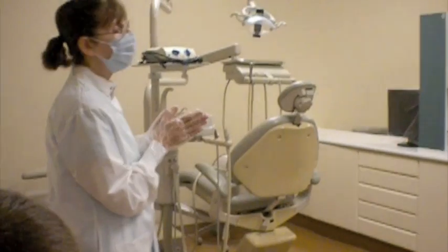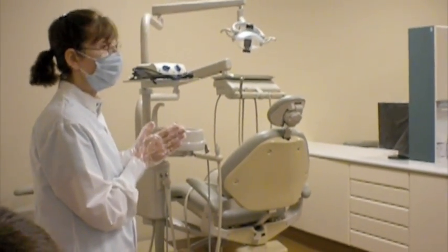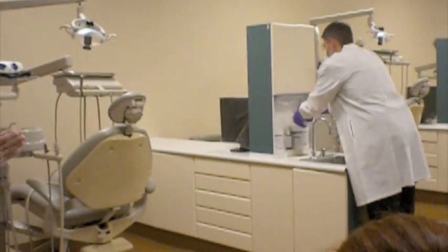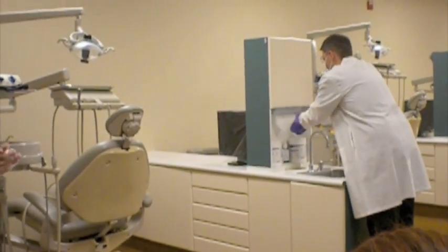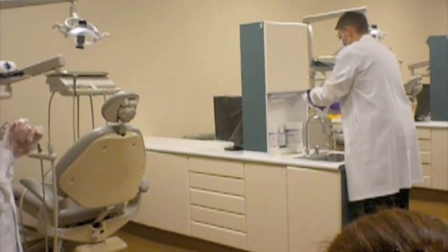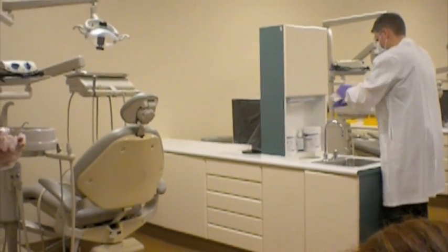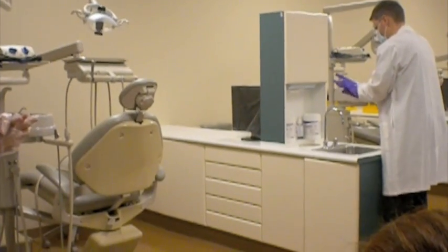How is he going to disinfect the unit? What supply will he use? Right, wipes, located right there at the sink, correct? In that container. So what he's going to do when he's done is put down 2 paper towels on the countertop, and he's going to pick up the wipes canister, and he's going to look at the wipes canister.